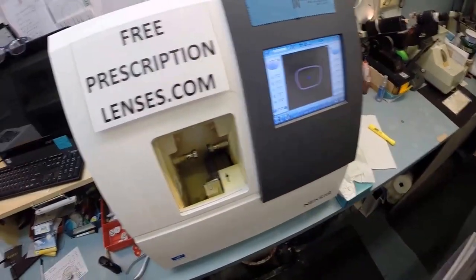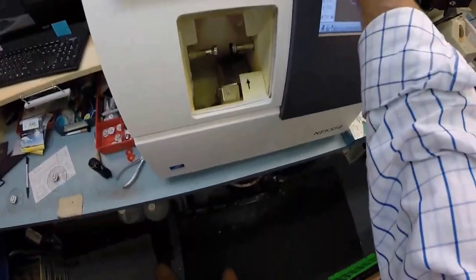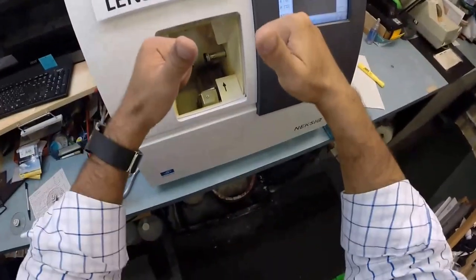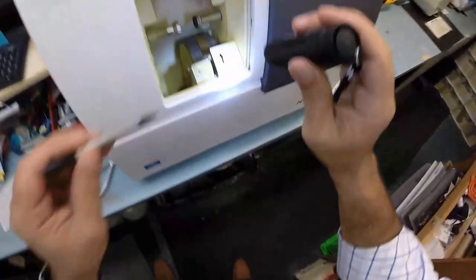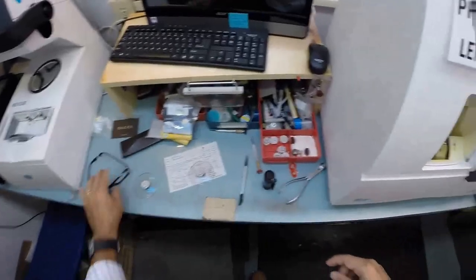Now this is the edger. This is what costs $40,000. It weighs 200 pounds. I recommend everyone go out and buy their own, put it on your kitchen counter. Then you can cut your own lenses anymore. You won't need this guy anymore is what I was going to say. Now the actual cutting wheel is over here on the far right. It's going to act like a heavy grit sandpaper to grind away your polycarbonate lens material. This wheel in the center, that channel, that little bevel, that's what's going to put the bevel on your lens so it stays inside the bevel of the frame.